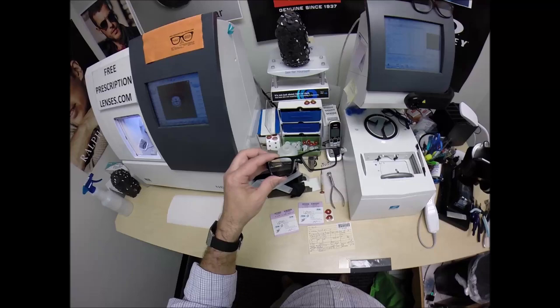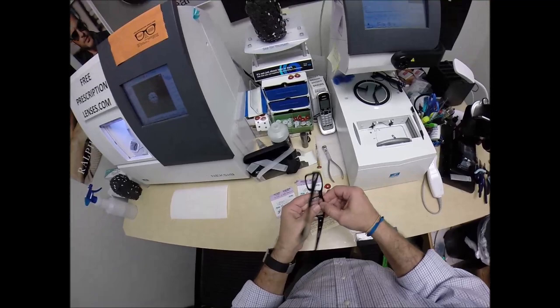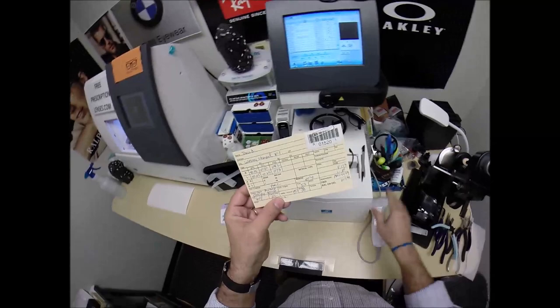If you're unsure it comes in four sizes which could be the reason: the 51, the 53 that I'm holding, 55, and then the largest 57. That's why David contacted me. He said his doctor's office only had the 57 eye size and it was way too big for him. Could he get it in a 53? I said yes, yes you can. Let me make it happen for you.